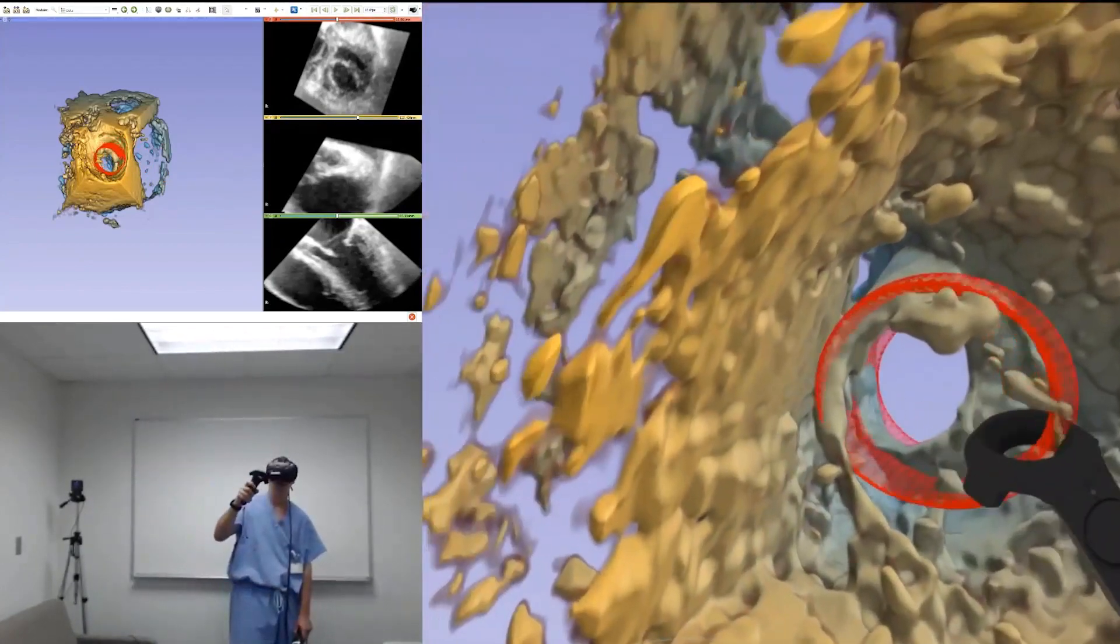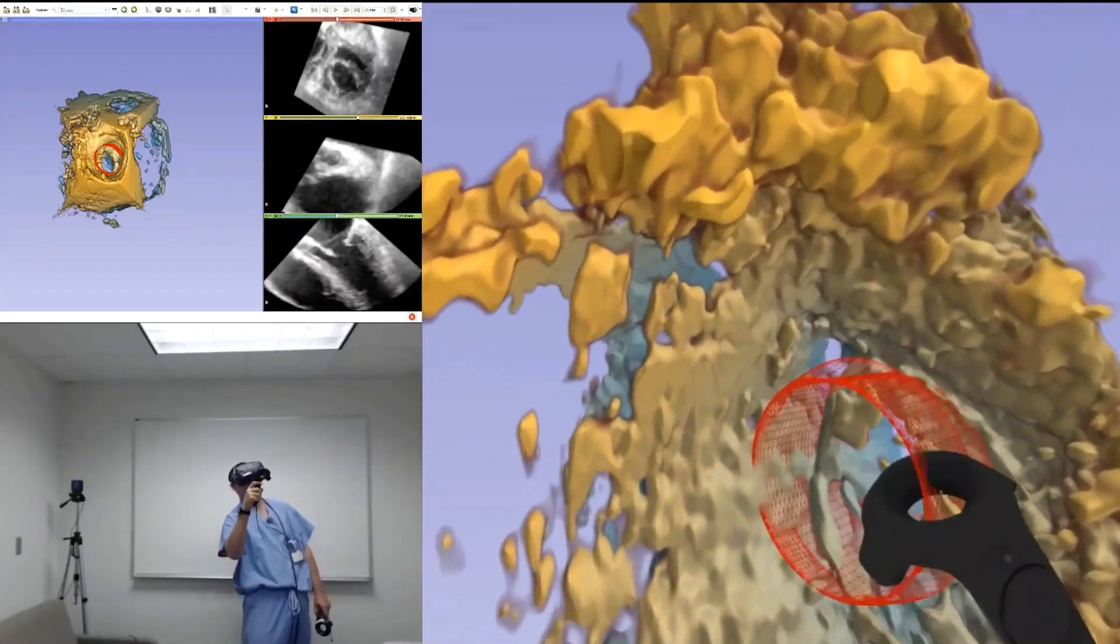We examine the potential for LVOT obstruction, as well as interference with other structures.